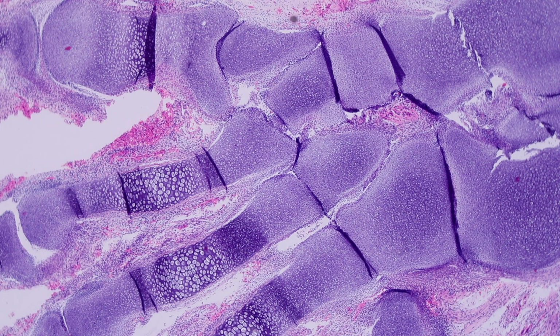He's visiting our institution to give some lectures today and tomorrow, and he kindly agreed to go over normal bone histology and development and reactive changes, a few other things, and we have a few residents, fellows, and even an orthopedic oncologist here at the table with us, so we're all looking at the scope together and learning from Dr. Rosenberg. So, teach us about bone and cartilage, please.